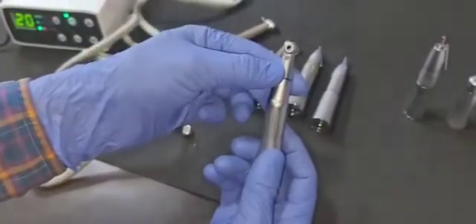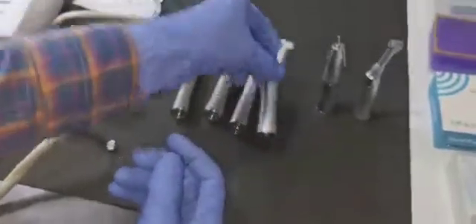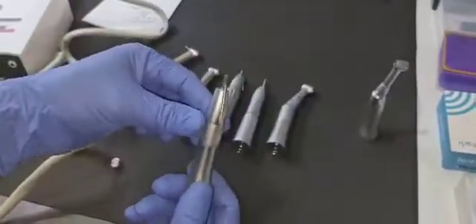This is again a contra-angle, internal water spray. This is again a new model of straight inner water surgical handpiece.